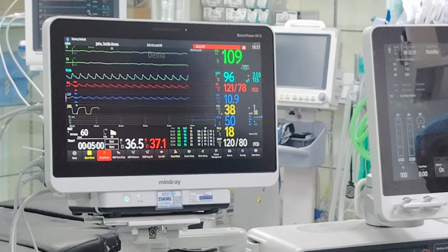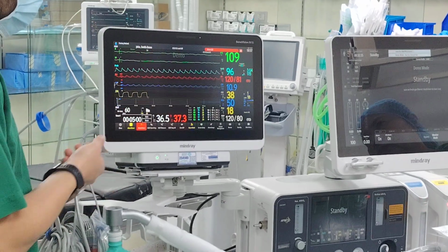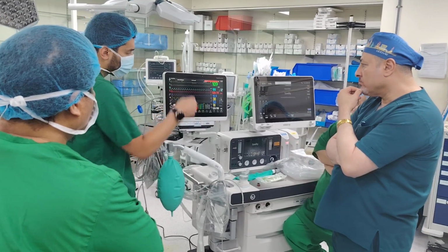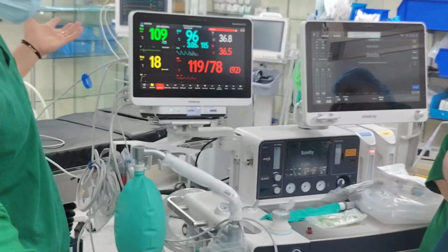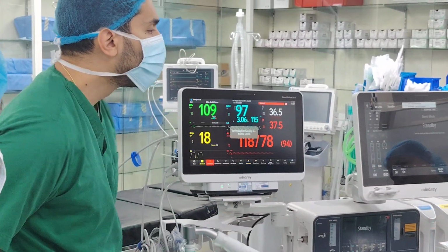Okay? Now, if you have a regional or local surgery, maybe you don't want to see numbers, you like big numbers, you don't want to see a lot of data and small data, so you can use 2 fingers, swipe like this. Maybe this is something I've seen people like, big numbers, basic numbers, right? You don't need advanced stuff. And the way you go back is the same, swipe like that.